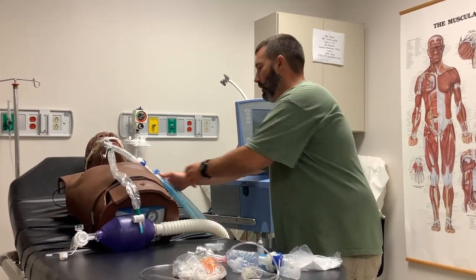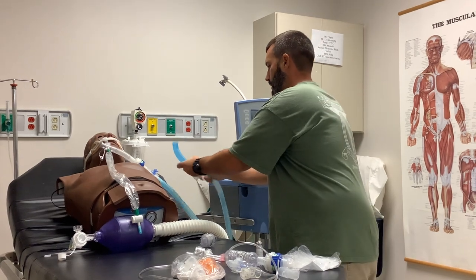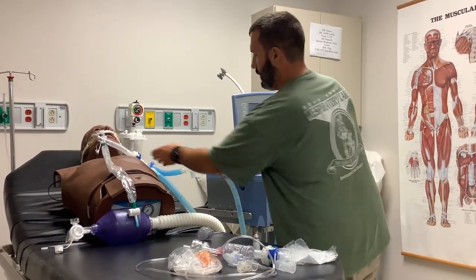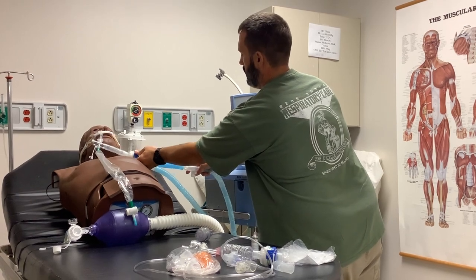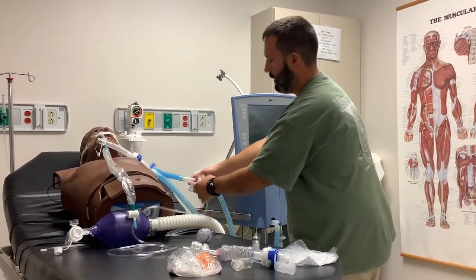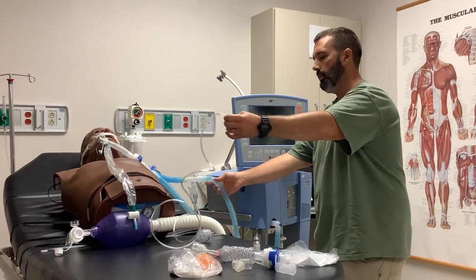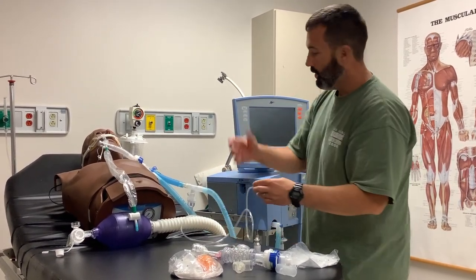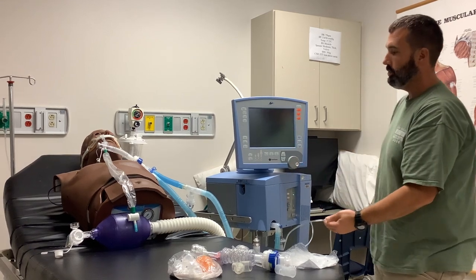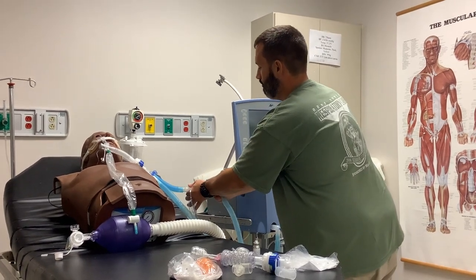If we're going to do the small volume NEB, take out the MDI and you've got your spring-loaded NEB-T in there. With the spring-loaded NEB-T, turn that to aerosol. Take your NEB cup and put it in line at the NEB-T with whatever solution of medication you're administering to the patient. Make sure you can utilize the vent arm, but the NEB cup needs to remain perpendicular to the floor so that it can actually nebulize. This ventilator has a nipple adapter so you can attach it and hit the nebulizer button, and it will nebulize every time it delivers a breath. The treatment runs for about 15 minutes.